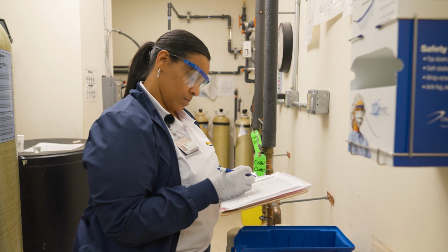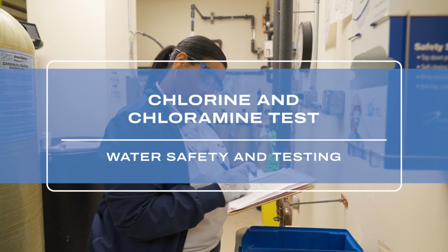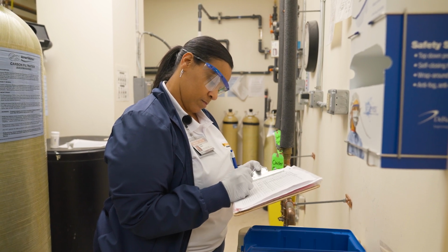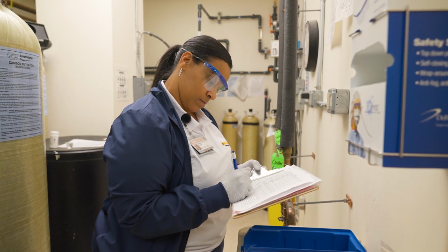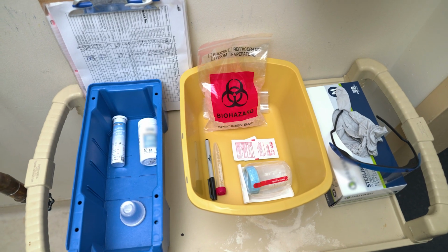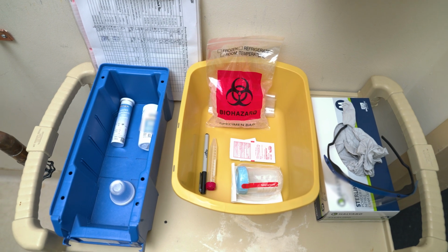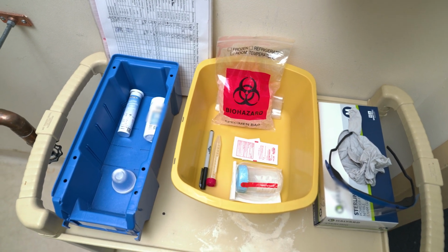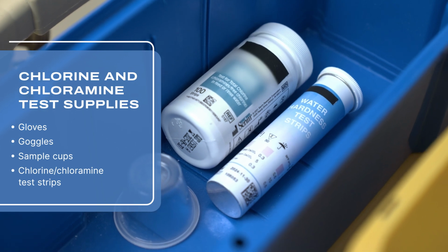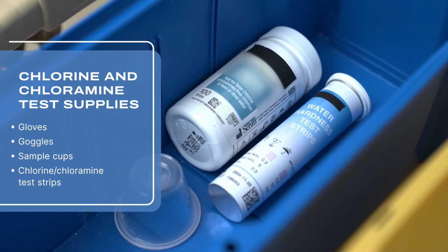The first test we'll be performing is the chlorine and chloramine test. If the machine is not running already, turn it on at least 15 minutes prior to collecting the samples to avoid gathering stagnant water and a false reading. This is a good time to take a moment to gather the supplies required for testing. Remember, they may be different for different tests. Here are the supplies you will need: gloves, goggles, sample cups, chlorine, chloramine test strips.